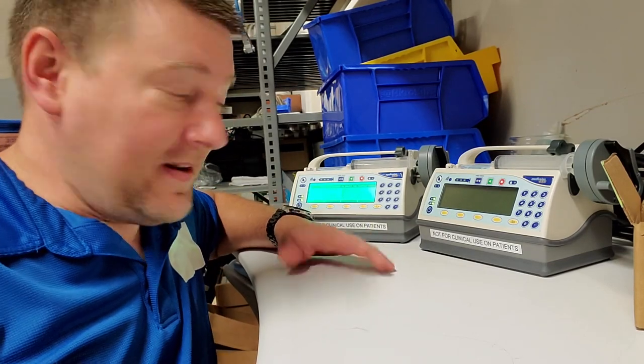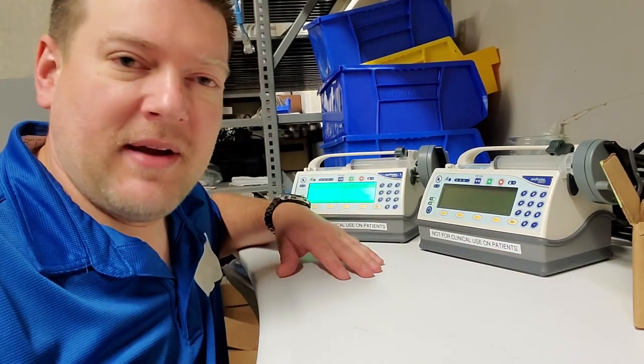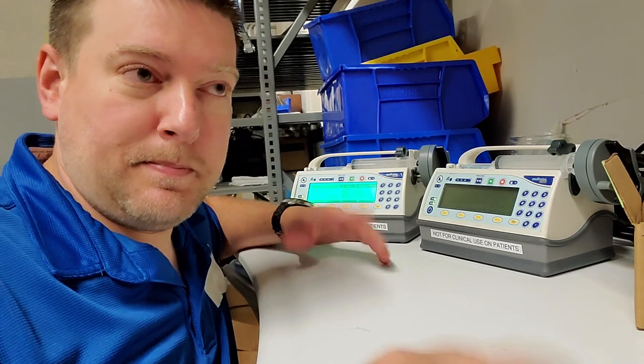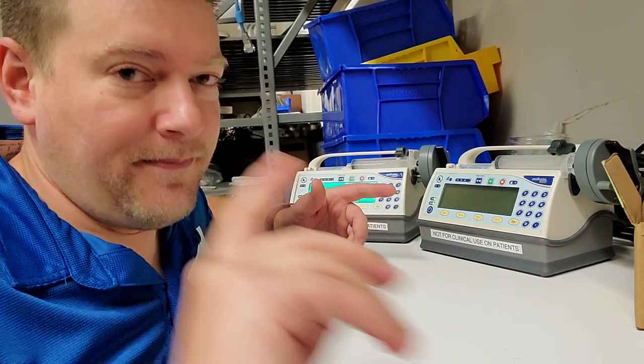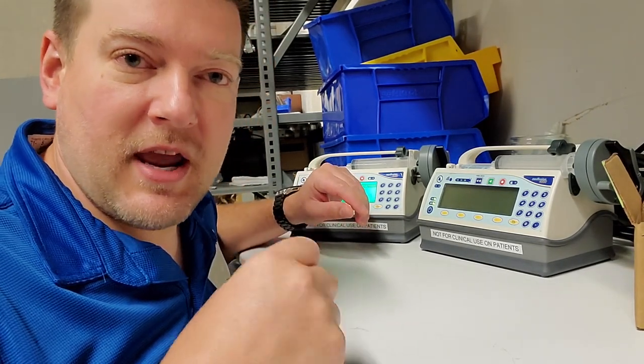Welcome back to Better Biomed. Today we're getting back to some of the basics with something a little different - not just an average infusion pump, but a syringe pump. Syringe pumps are used for giving out a very specific amount of medication.